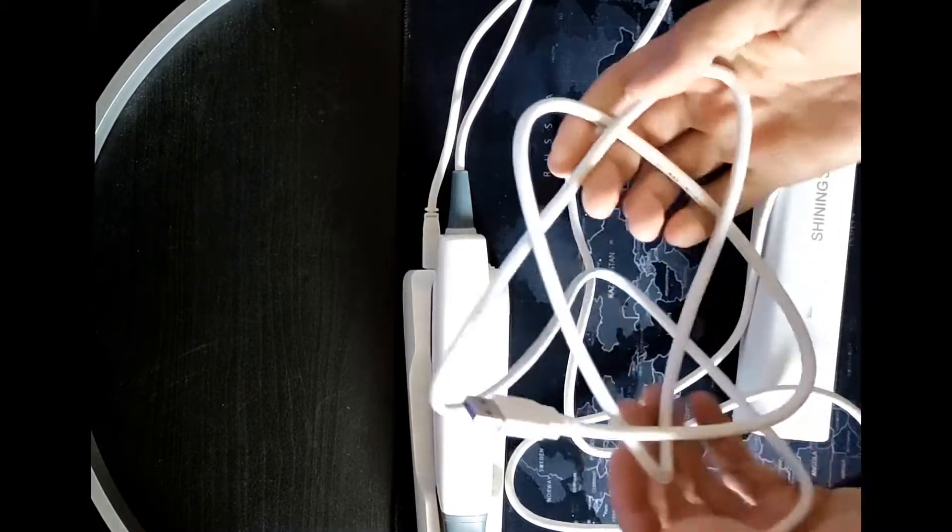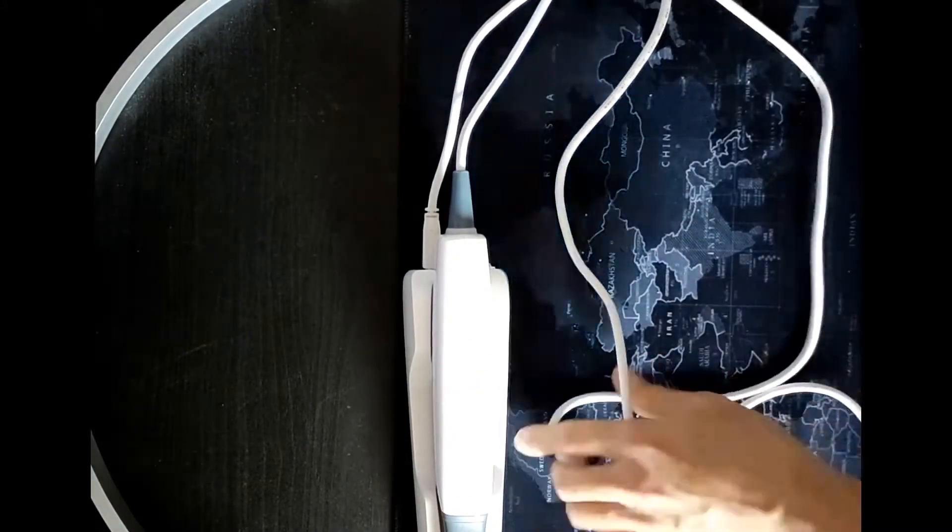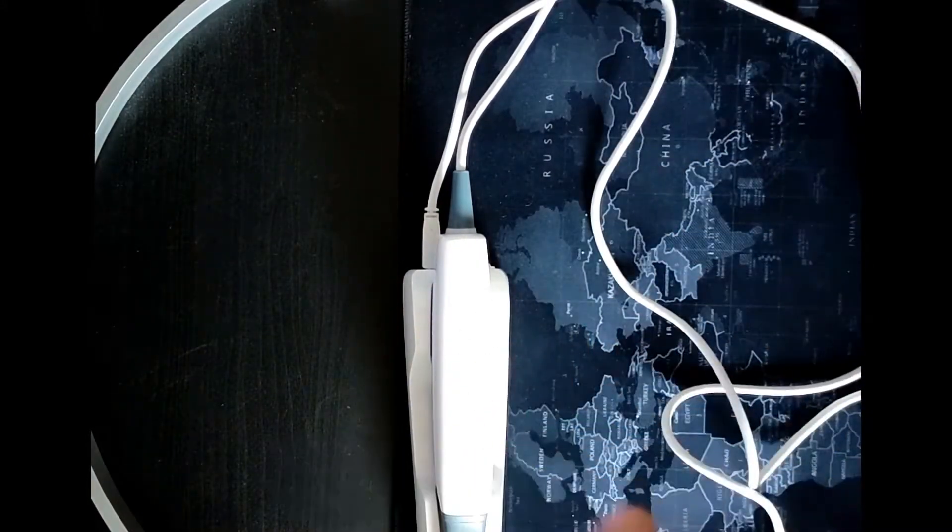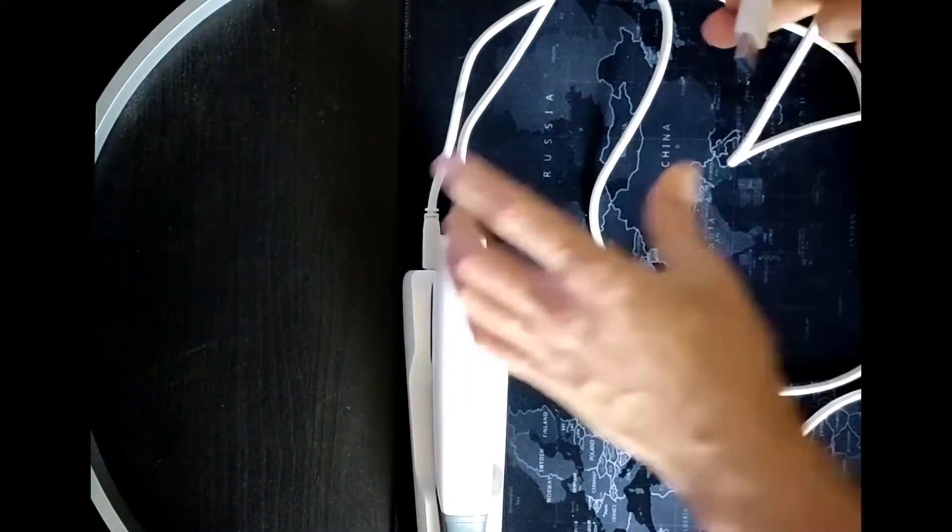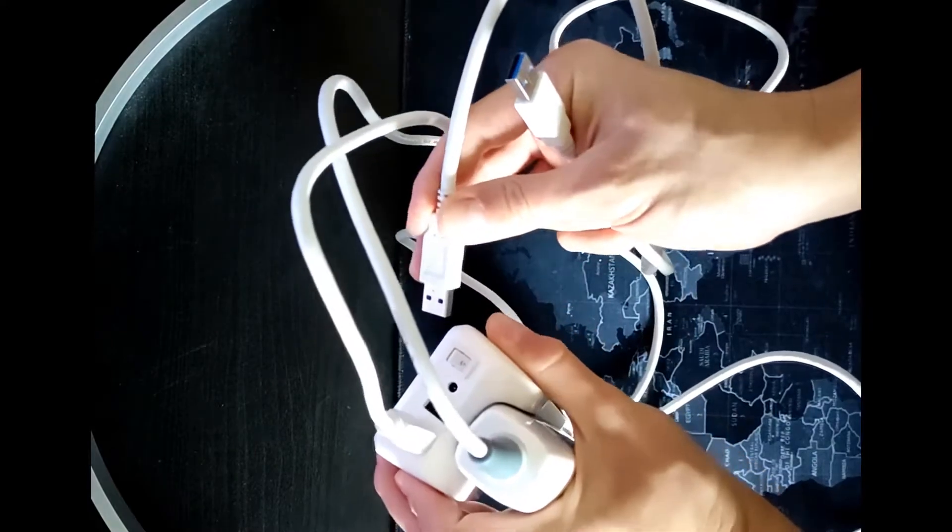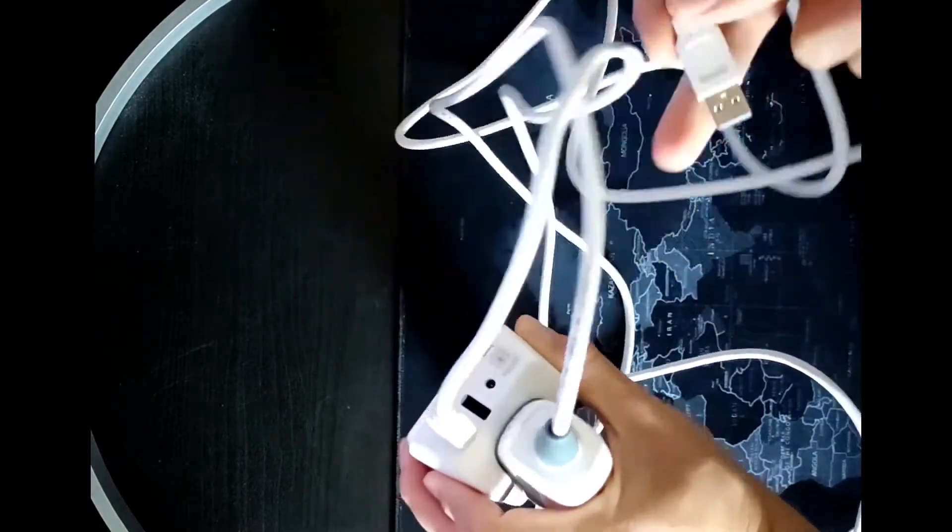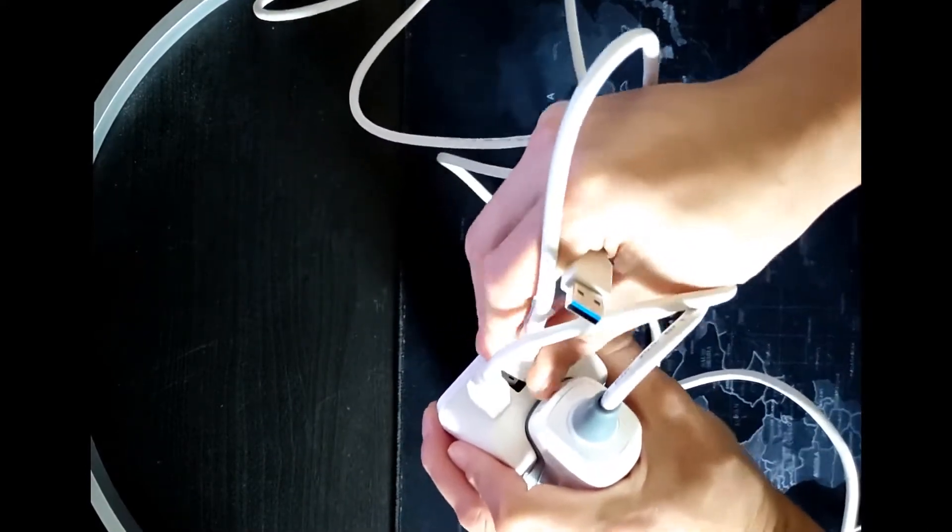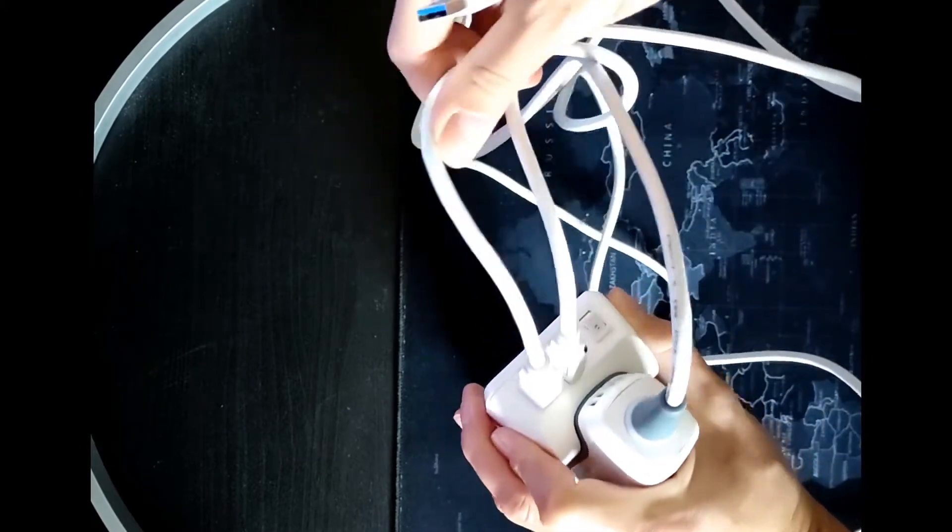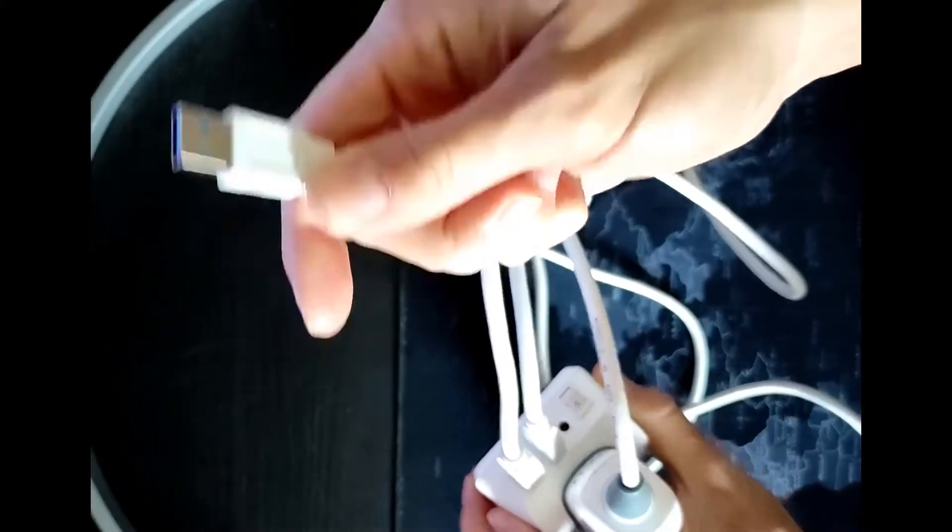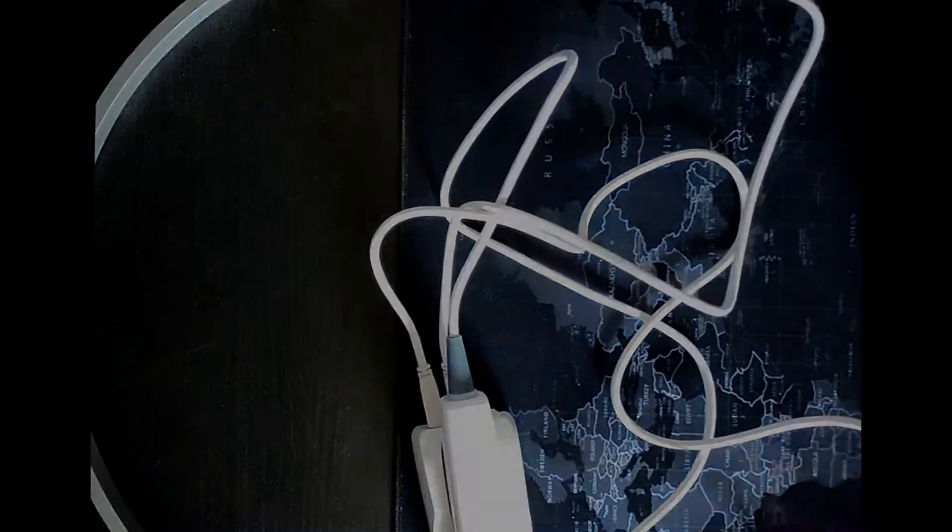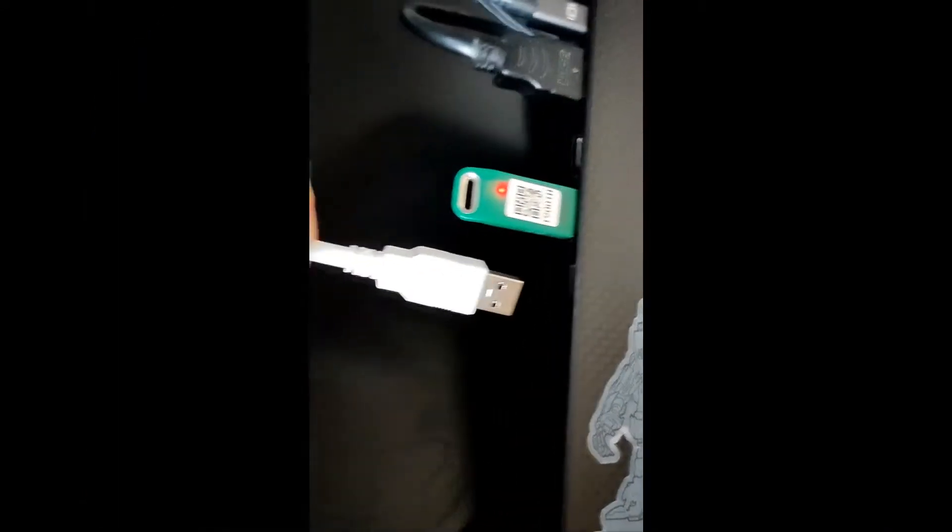We can proceed connecting the base to our computer. I remember that is mandatory to connect directly the USB that comes from the base to our computer with a direct connection. So please, don't use any hub or multiple USB port.